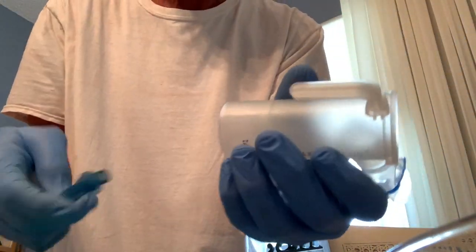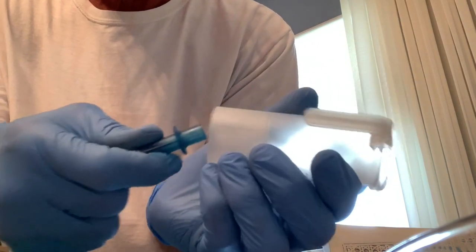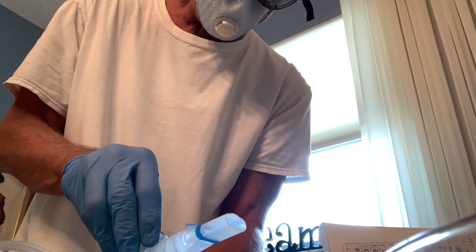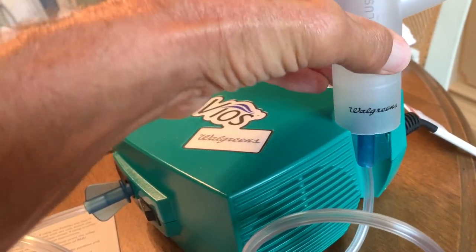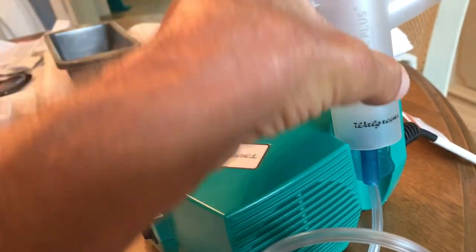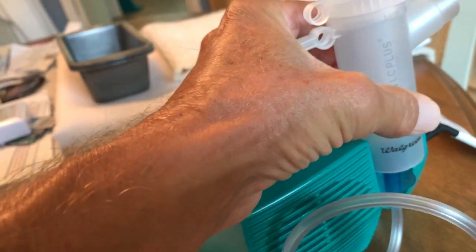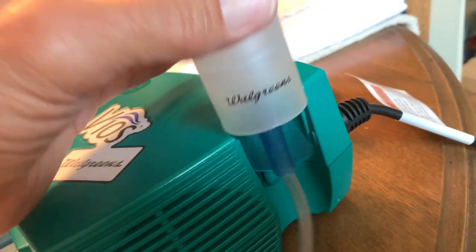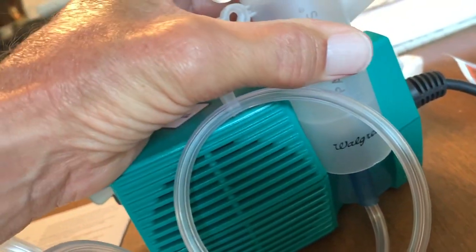Alright, and that's pretty much it. Set her up on the back — shove this right on there, and that baby is ready to go. We're going to slide it right here for now. This little thing here, you can slide this into it to hold it, like that, and that should hold it right there. See that little catch down there? It just goes down into it.